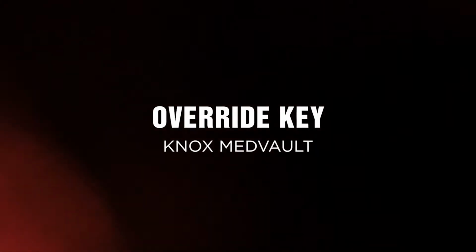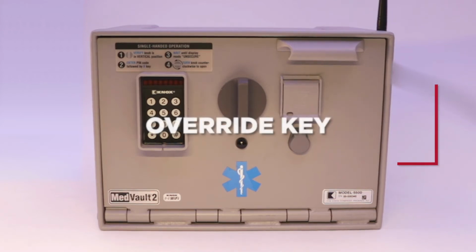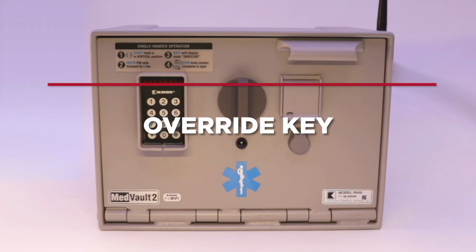In this video, we're going to show you how to use the override key for the Knox MedVaults in the event that the vault is not able to open. The MedVault will not be able to open if there is a complete loss of power.